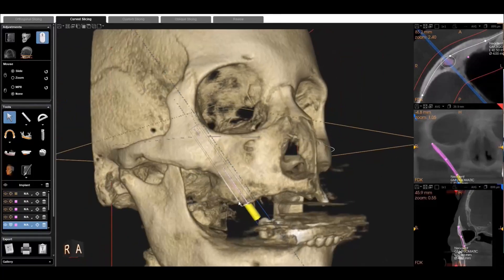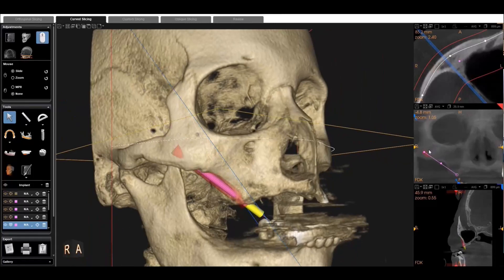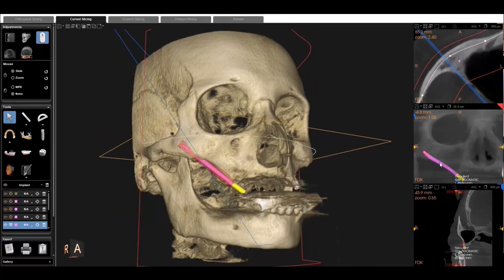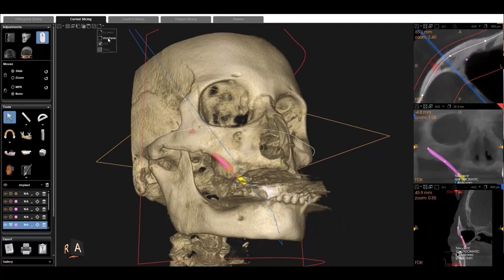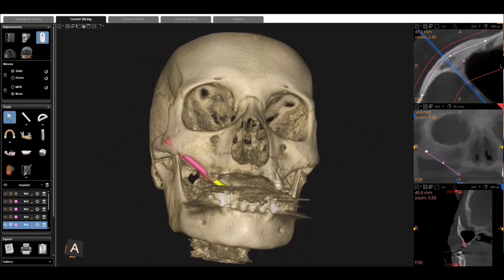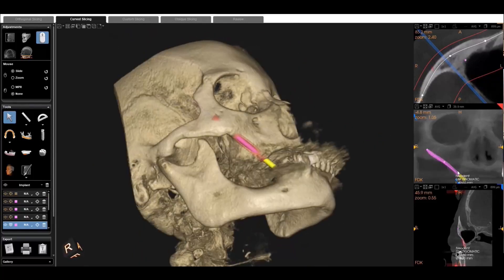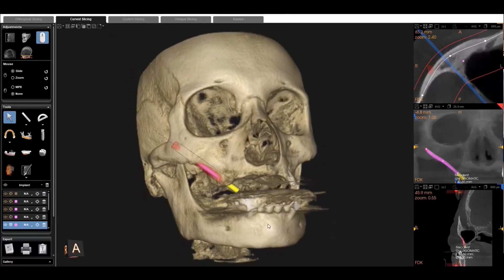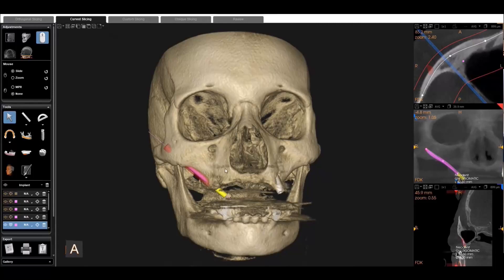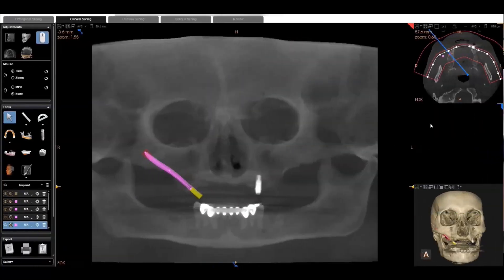So now you can see he's manipulating everything. We're going to look at the 3D rendering. You can see in the panoramic view he's manipulating the angle of the implant. I'm just going to let this play out and not do a ton of talking — you'll kind of see how he's manipulating everything and getting it into a position that he likes. Right now he's turning off the wireframes just to get rid of those planes, making it a little bit easier to see everything. I'm sure there's more you can do when planning implants in the zygoma — this is really just a little taste of what you can do and to get you started. Hopefully this was helpful and we'll see you guys around.